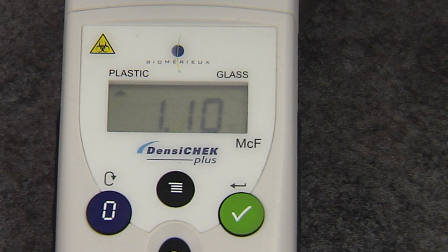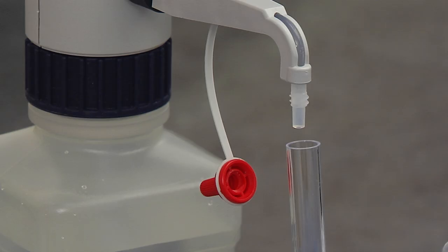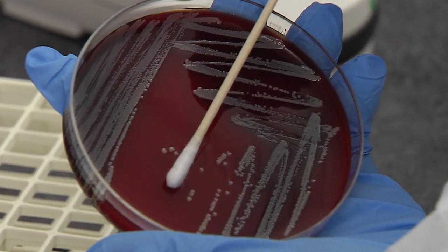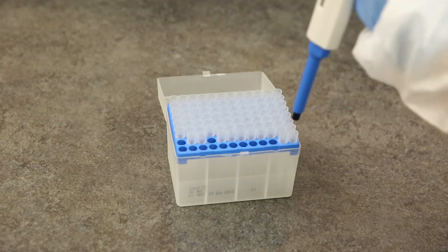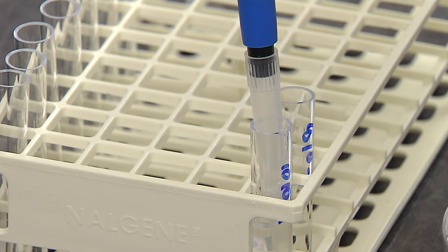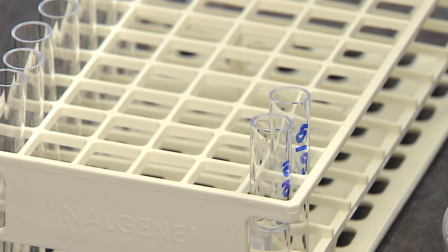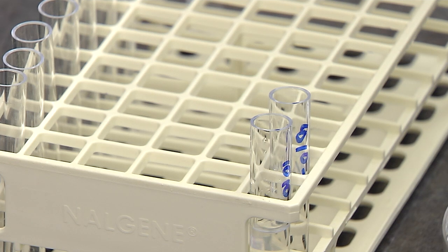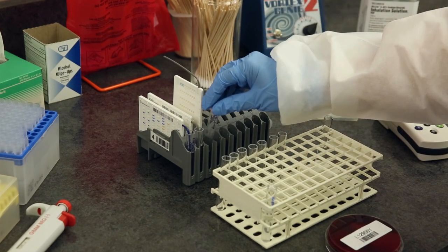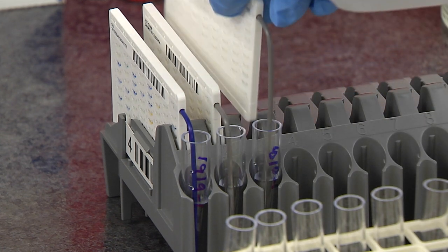Check that the displayed McFarland unit is within the acceptable range. If the organism suspension needs adjusting, add more saline or organism following the instructions given previously when setting up an ID and AST card pair. Since a gram-positive AST card is being set up, use the 280 µL pipettor to transfer an aliquot of organism suspension to the other labeled saline tube. It is not necessary to mix this AST suspension, as mixing will be performed by the instrument. Place the tube in front of the AST card, then turn the AST card and place the transfer tube into the AST suspension.